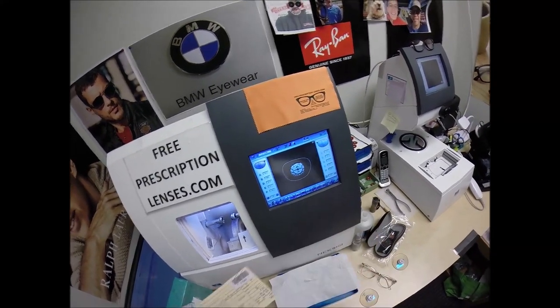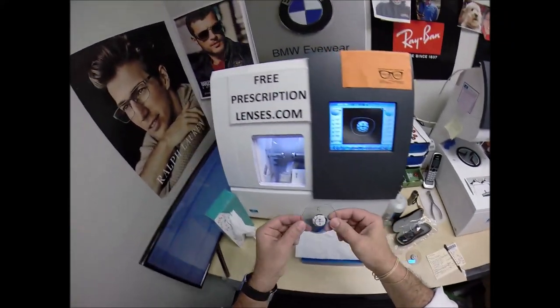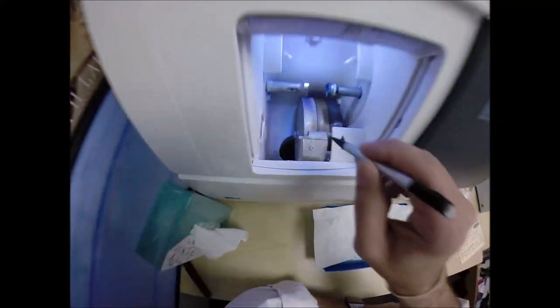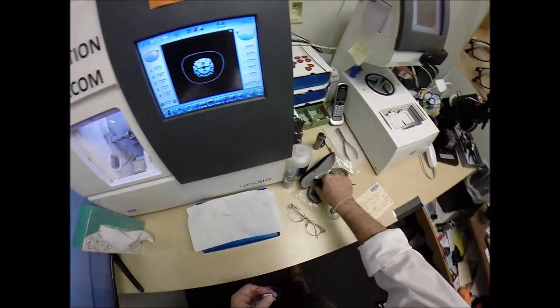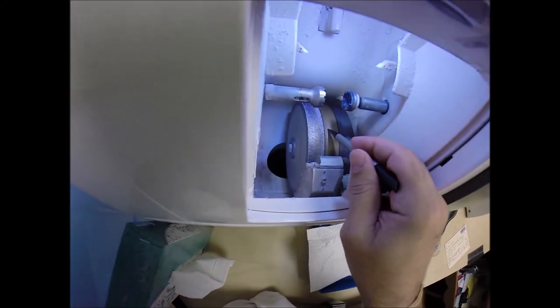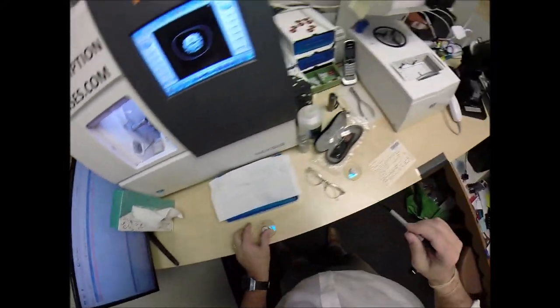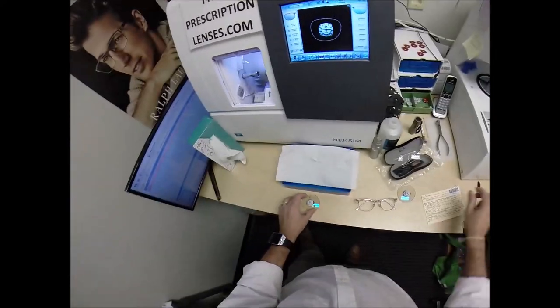I'm not going to polish the edge of the lens, but I am going to put a safety bevel on the rear concave surface of the lens. Now it's time to put the lens into the edger. The actual cutting wheel is a diamond-crusted wheel that's going to grind away your lens material until it's the right size. That center channel — that little valley — is what's going to put the V-shaped bevel onto the lens so it stays inside the bevel of the frame.